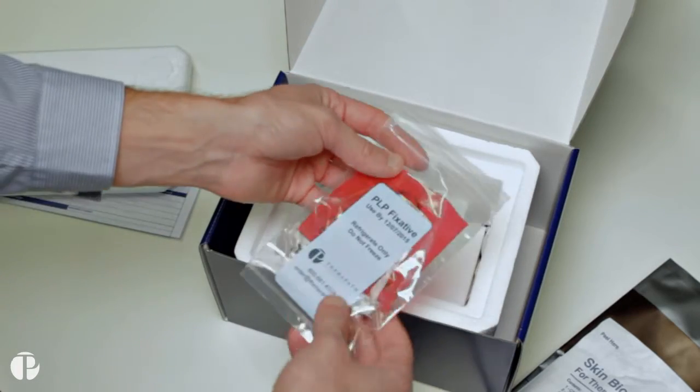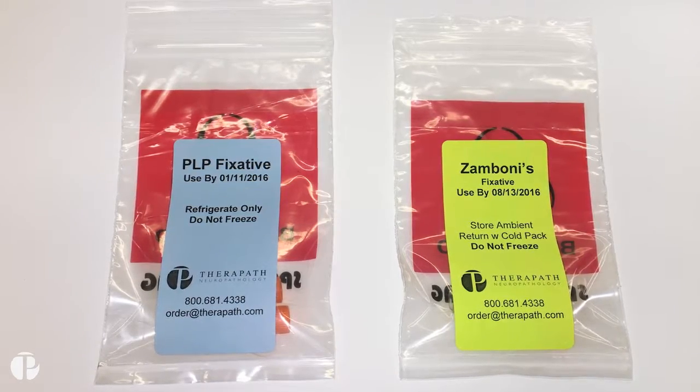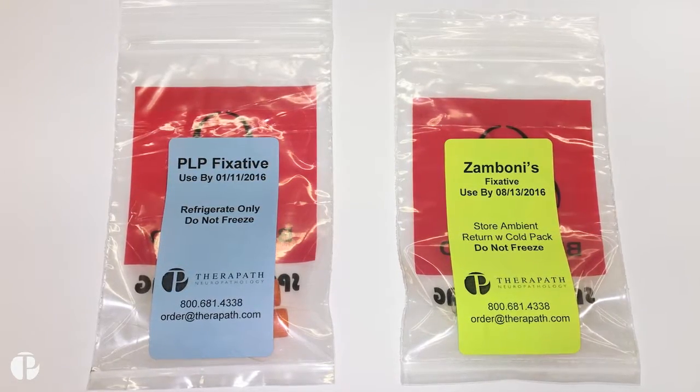Store the fixative as indicated on the biohazard bag and note the expiration date. PLP fixative is good for 28 days and requires refrigeration.